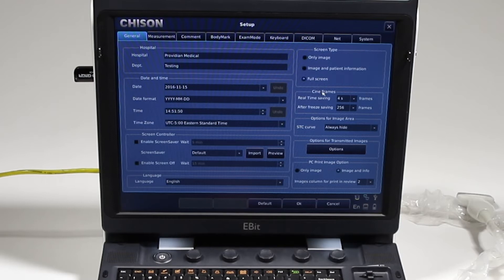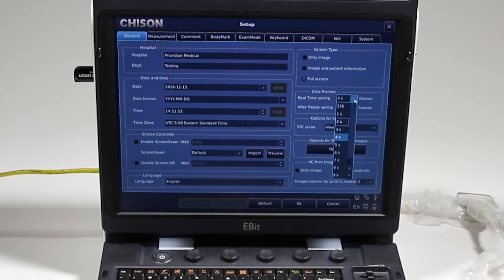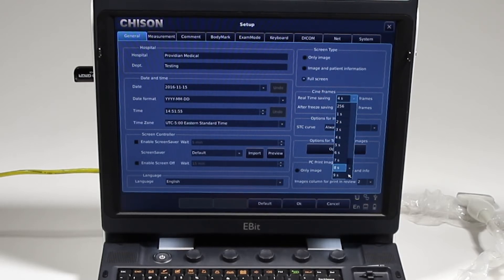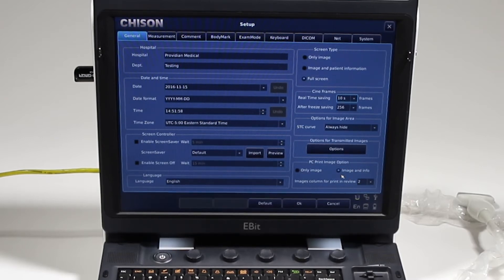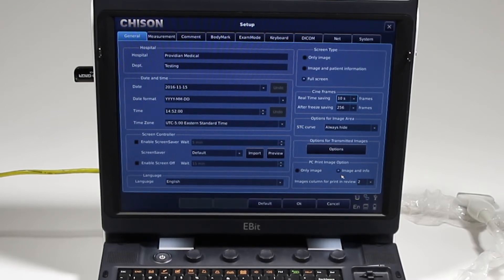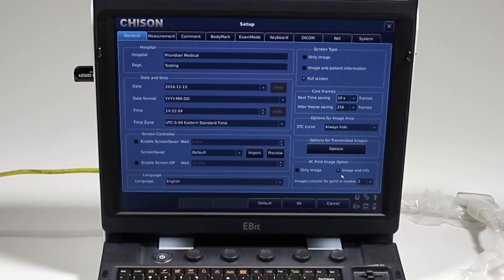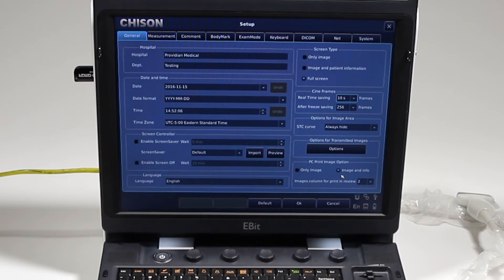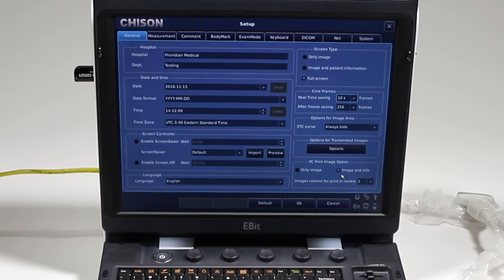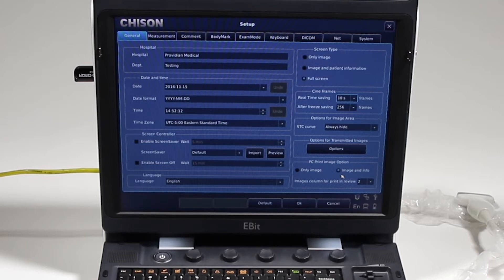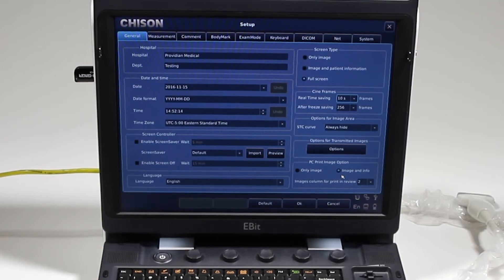When you hit save, is it going to show just the image and patient information, only the image, or everything on there including the parameters that you saved? We talked about this here: how many cine frames you want to store. One thing I didn't mention is I can set it at 10 seconds, but still the maximum number of frames it can save is 256. So depending on your frame rate, if your frame rate is 70 frames per second, it's not going to save 10 seconds worth of video. It's only going to save about four and a half seconds of video for 256 frames.